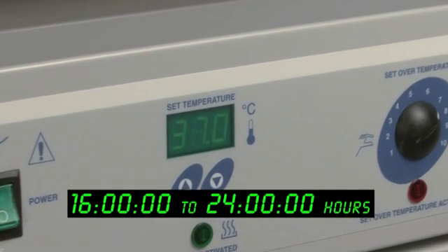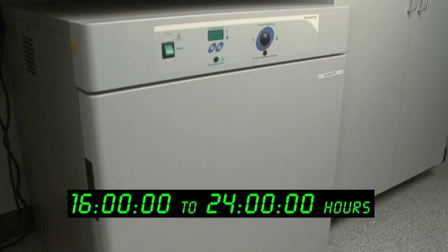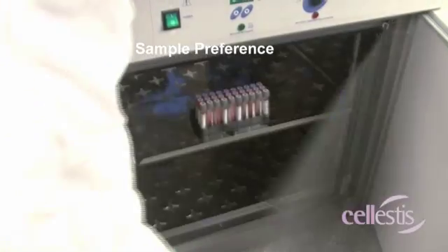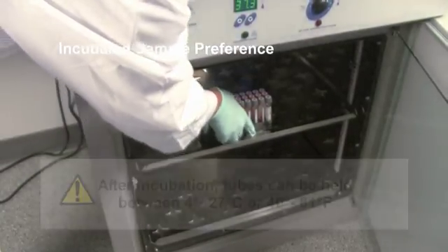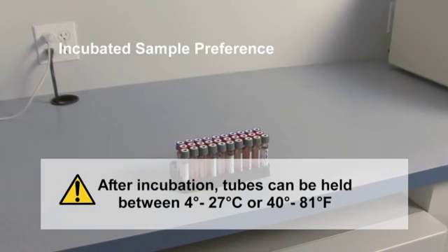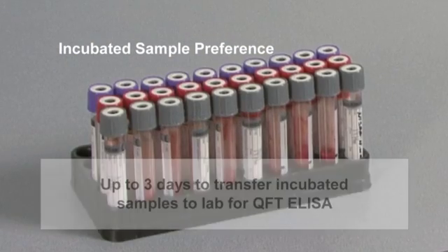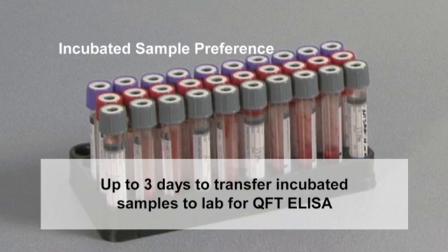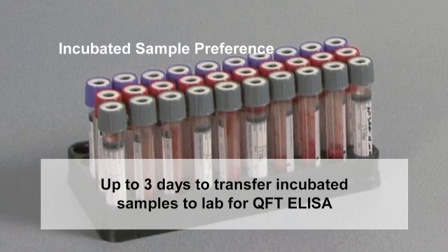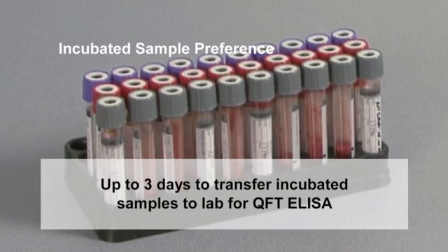This incubation should continue for 16 to 24 hours and is usually performed overnight. Following the incubation, the blood collection tubes can be held between 4 and 27 degrees Celsius or 40 and 81 degrees Fahrenheit for up to 3 days. Therefore, after completion of incubation, you have up to 3 days to transfer samples to the laboratory for plasma testing using the QFT ELISA.